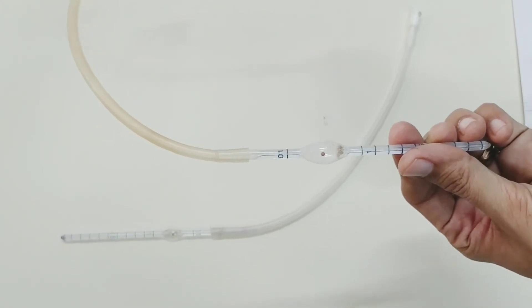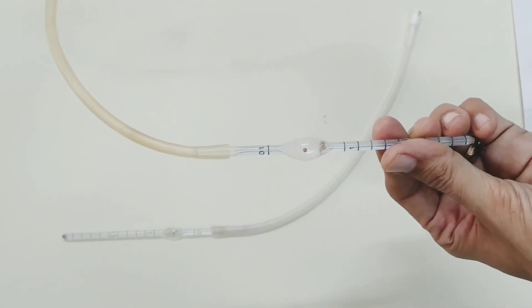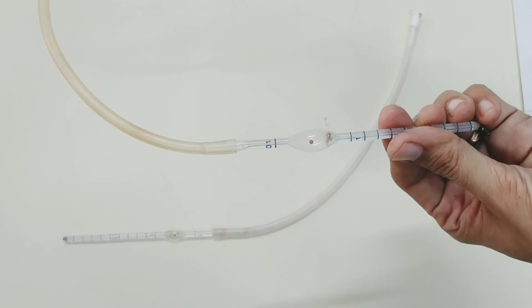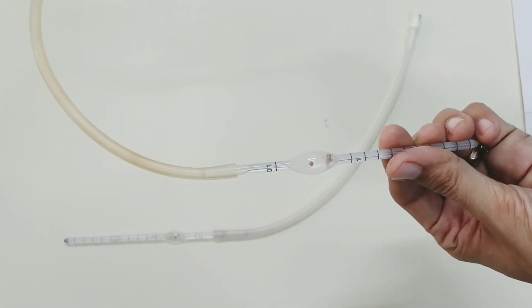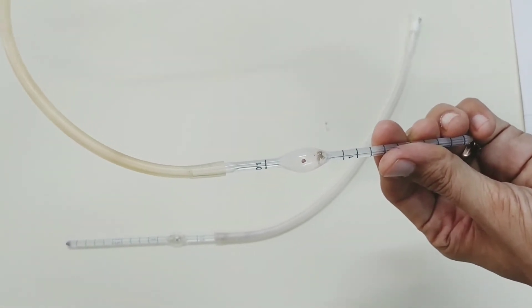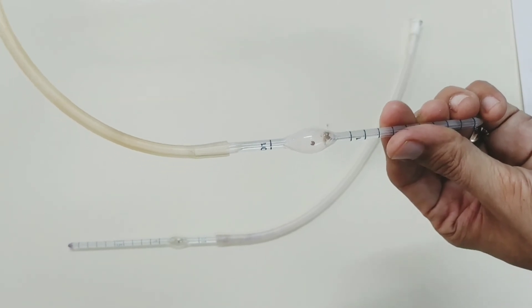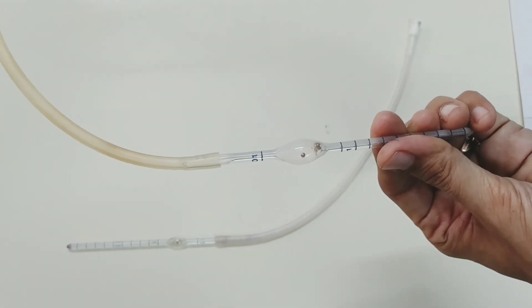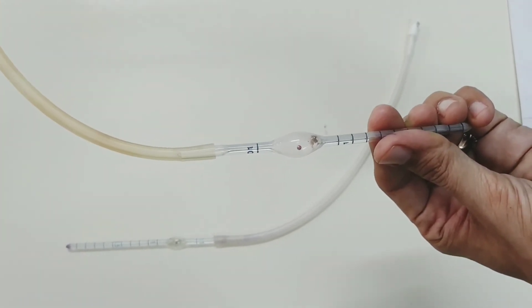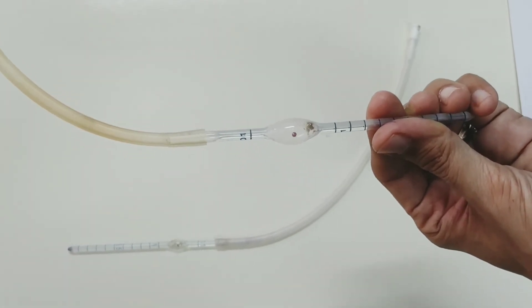Other uses of the pipette: RBC pipette is used mainly for RBC count. It is also used for counting platelets, WBC when the count is very high like in some leukemia, as well as for spermatozoa sperm count in semen.